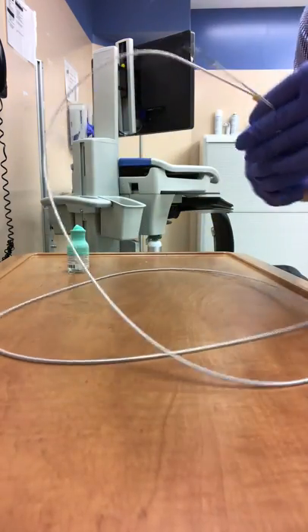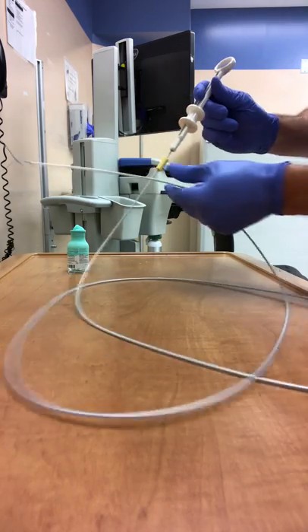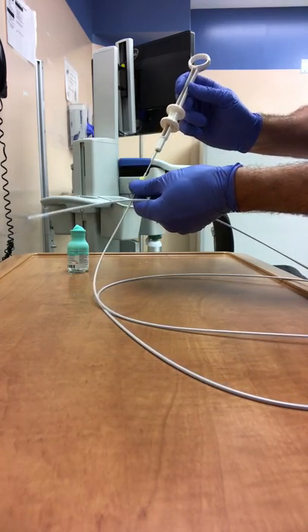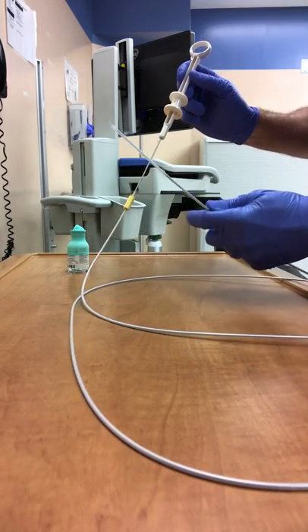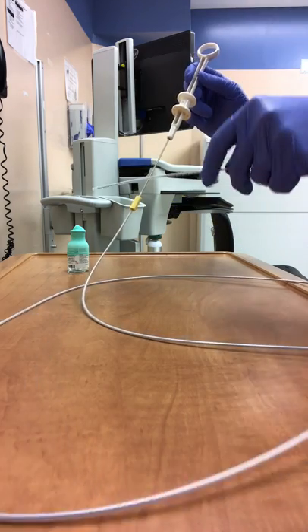In order to put the device through the endoscope, you must take the yellow tab and the handle and separate them. The loop will then be hidden inside the catheter and be placed through the endoscope.